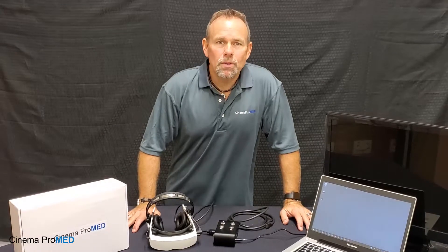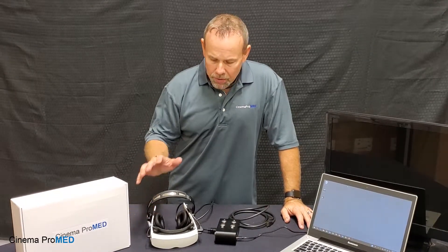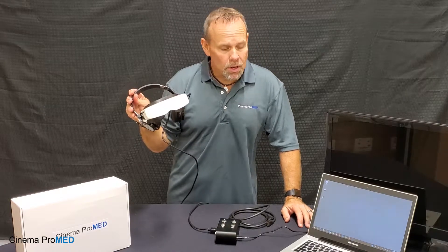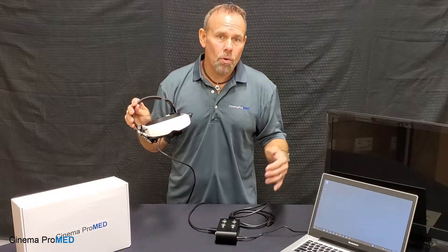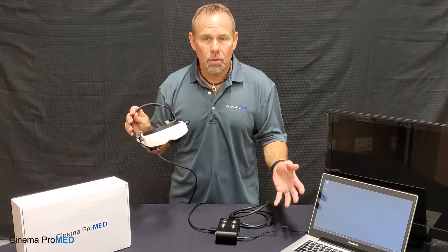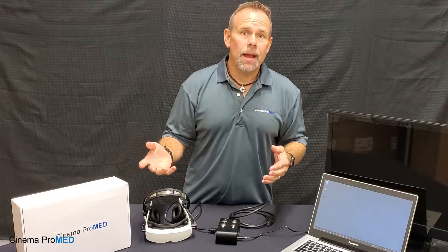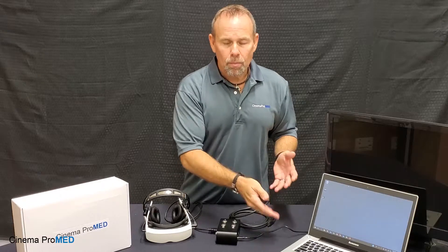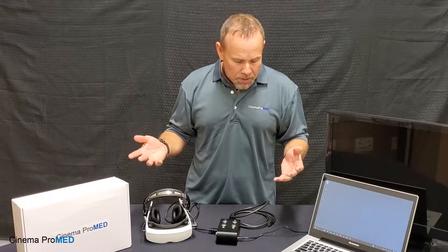Hey everybody, this is Dave from Team Cinema ProMED. What we're going to show you is how to connect your Cinema ProMED video goggles up to a PC, Mac, or basically any computer. We've had a lot of customers who capture their own videos, put movies and things like that on their computer, and want to be able to show them on the goggles — so it's pretty simple.